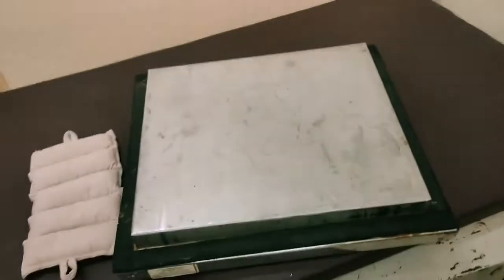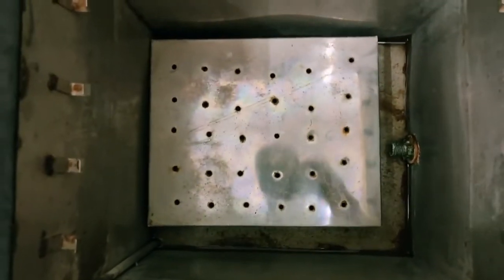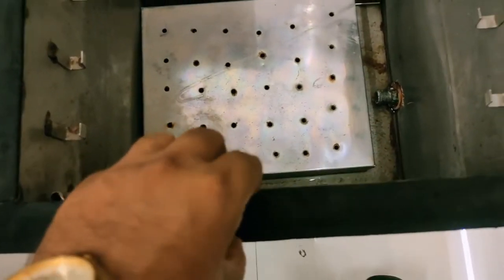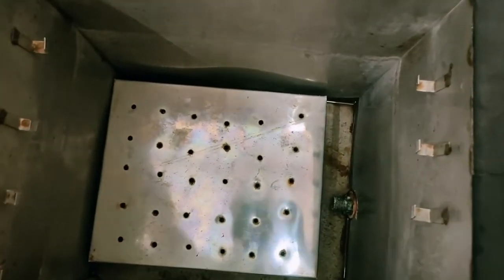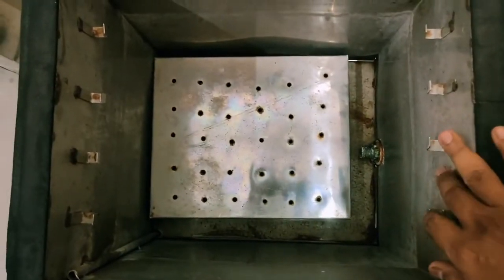The unit is made up of metal and there is also a lid. As you can see from inside, it is also made up of metal, but between those layers there is insulation to maintain the internal temperature. Whatever temperature is set inside, it has to be maintained, and this is achieved with the help of that insulation.